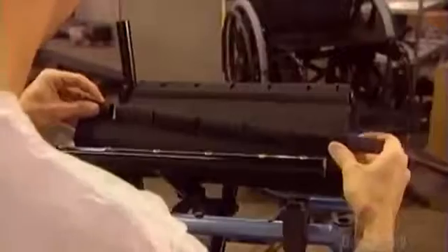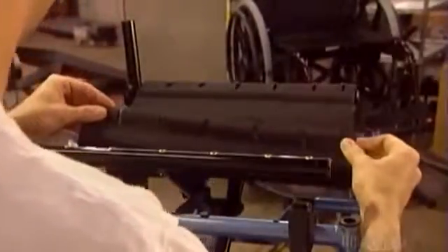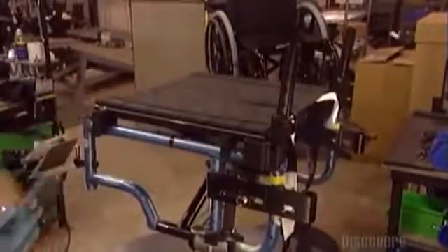The chair has a foldable sling seat made of nylon that attaches to the frame with six screws on both sides. You can adjust the armrest height from 20 to 28 centimeters, and the tension in the backrest with three Velcro straps. The backrest is also made of nylon and comes in nine different heights.